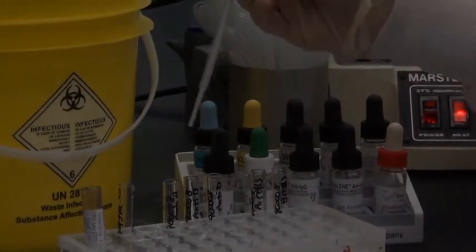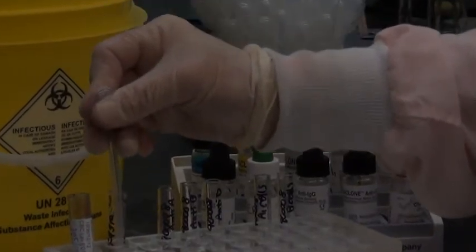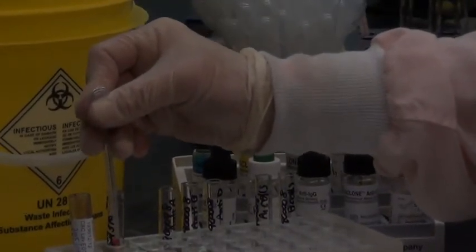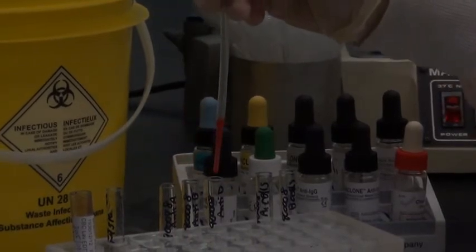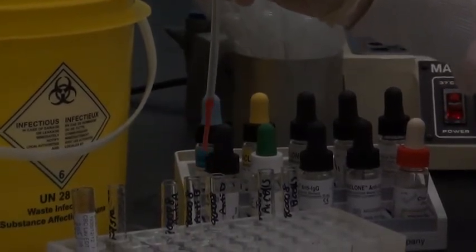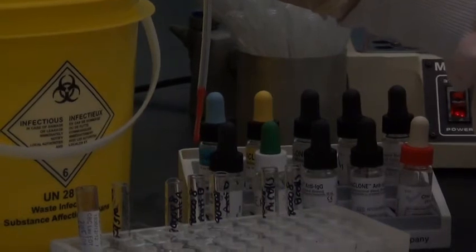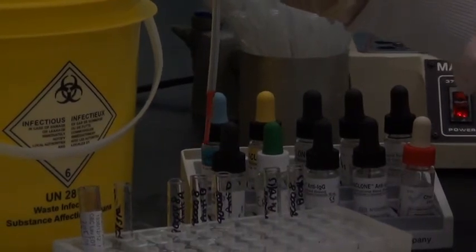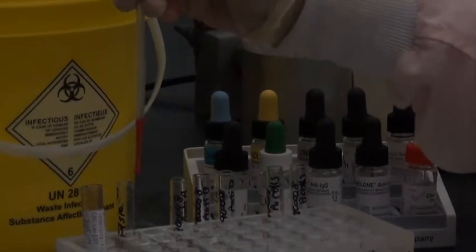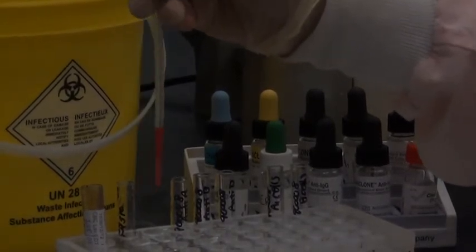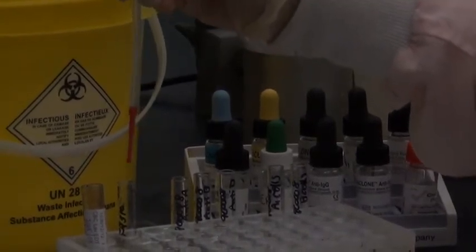You grab another pipette, and we're ready to pipette out our 5% patient cells into the forward grouping. With what I have left in my pipette, I'm going to throw this in the biohazard. Instead of risking putting this back in this tube and accidentally getting it into another tube if I'm doing more than one ABO RH.